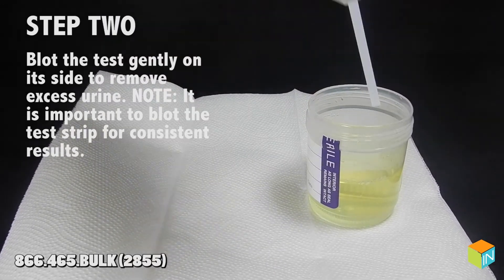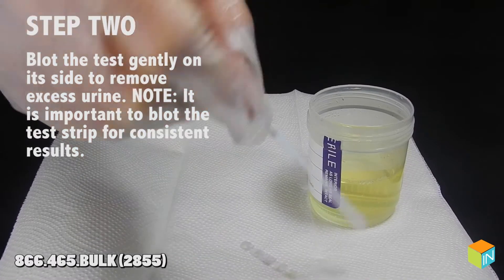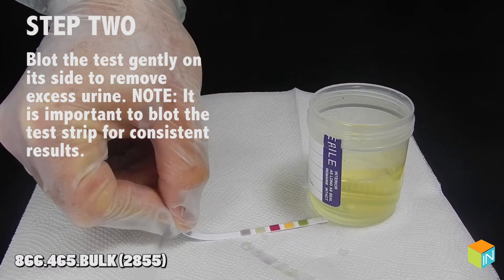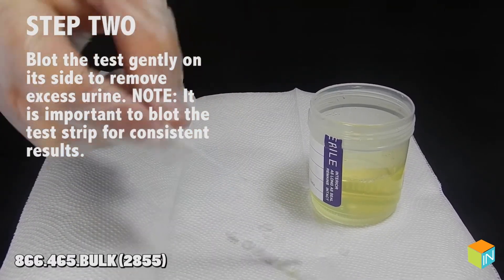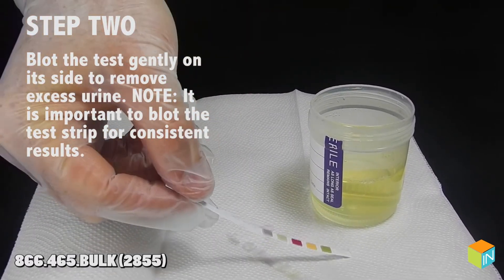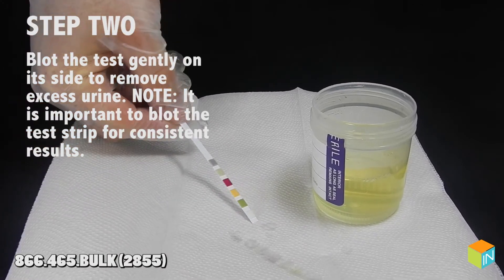Step 2. Blot the test strip gently on its side to remove excess urine. Note: it is important to blot the test strip for consistent results.